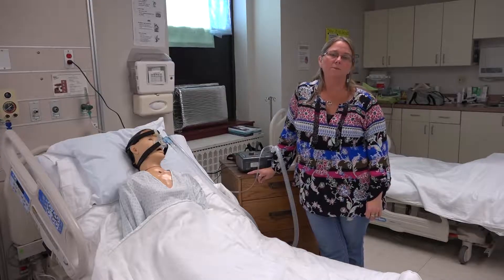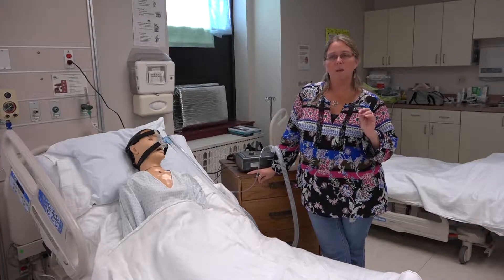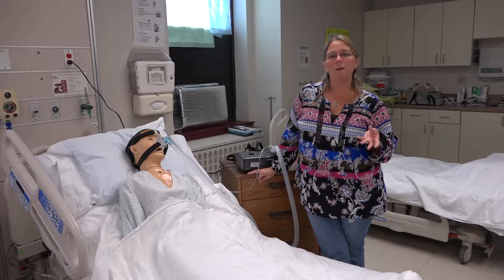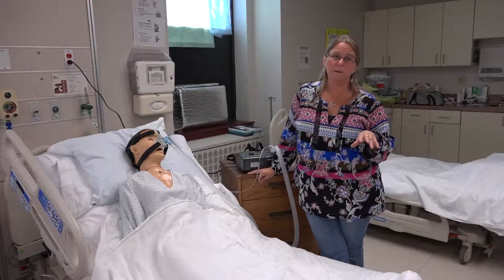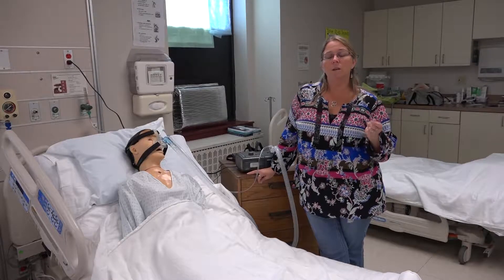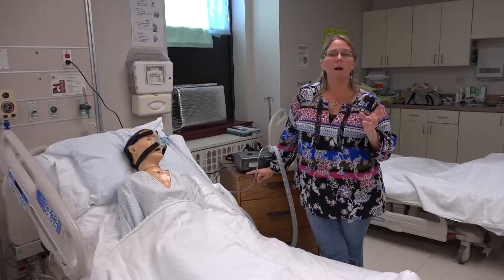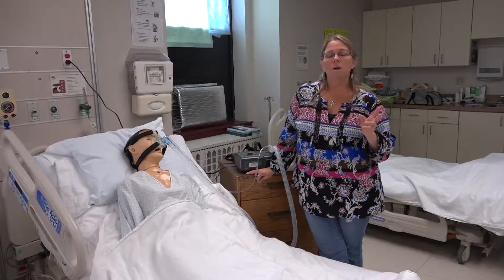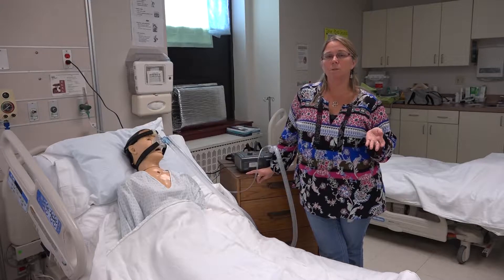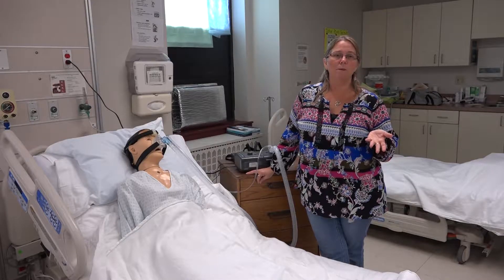The main differences between CPAP and BiPAP: CPAP is one continuous pressure, where BiPAP is two. For people that have sleep apnea, they normally will have a CPAP device because all they need is to open the airway so they breathe continuously throughout their sleep cycle. With BiPAP, it's usually more indicated for people that have respiratory failure — people with an increased carbon dioxide level. BiPAP works as a non-invasive ventilator, helping to ventilate the patient more than a CPAP generally would. Most patients on BiPAP will have oxygen added, where people with CPAP for simple sleep apnea don't usually require oxygen because once their airway is open, they breathe spontaneously.